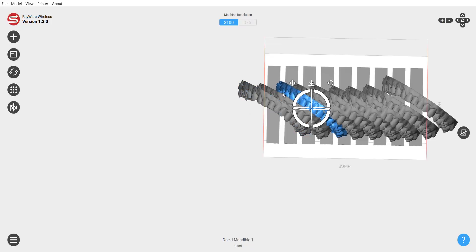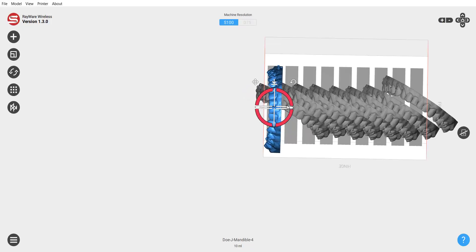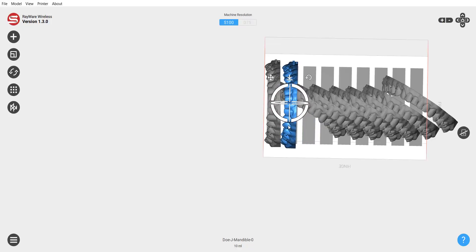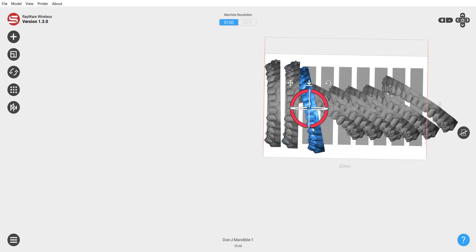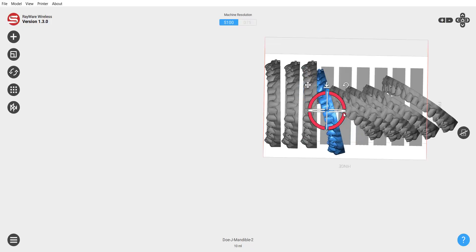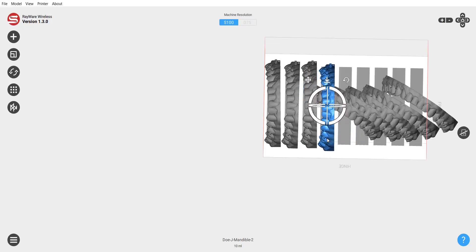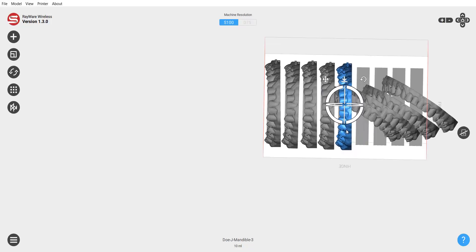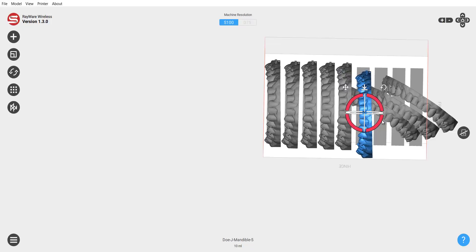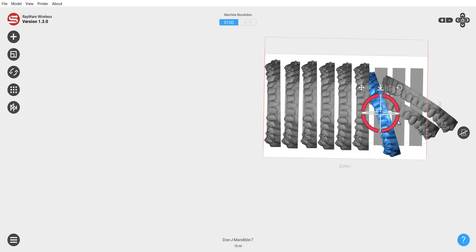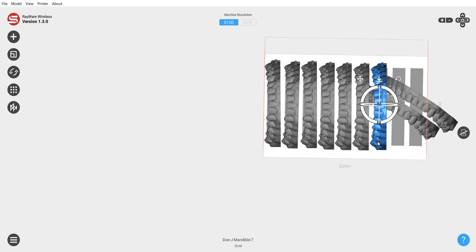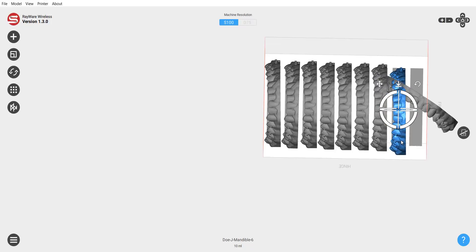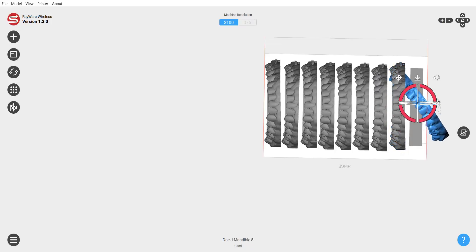So, let's spin this. Okay. Center it a little better, spin it, and center it, spin it. And now, this may seem tedious, I suppose it is, but it's easy. There's not a lot of thinking, not a lot of processing power going on the computer. It's just a little bit of, you know, move it, spin it, move it, spin it, move it, spin it. And if we can get the folks at SprintRay to give us the ability to just highlight multiple models, and then, you know, spin at the same time, which I have requested just recently. So, I mean, hopefully that will be coming in a very soon update to the software that will make this process that much faster and so much more desirable as opposed to the previous methods I have advocated in the past.